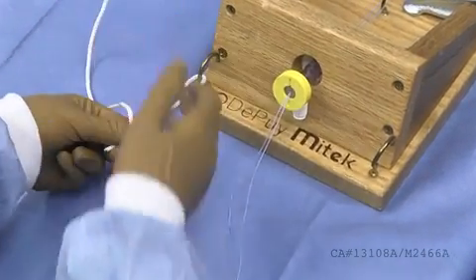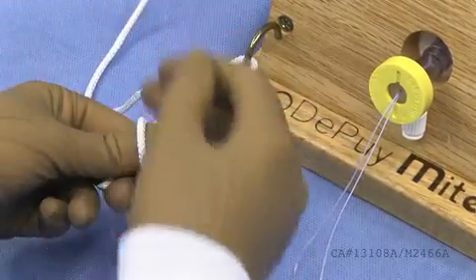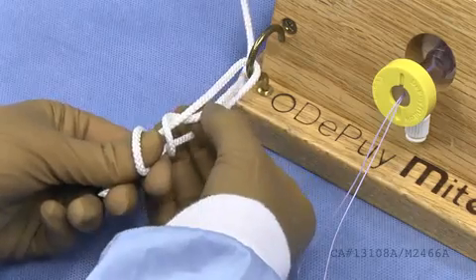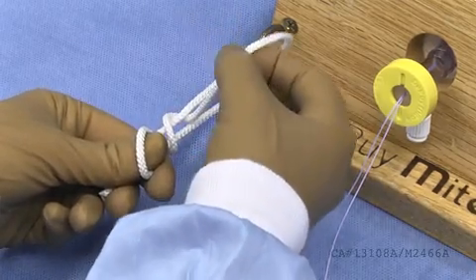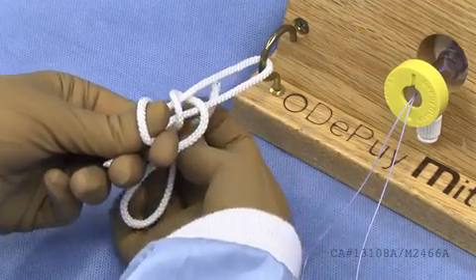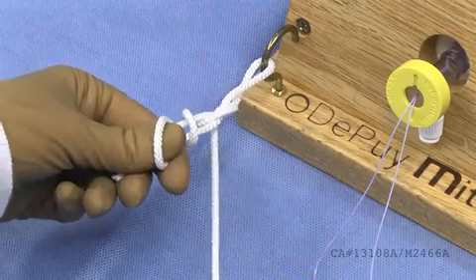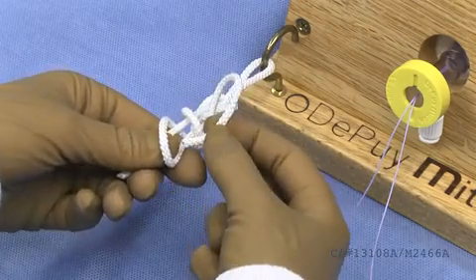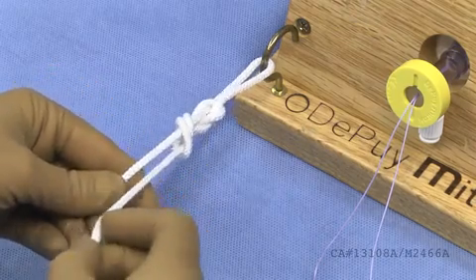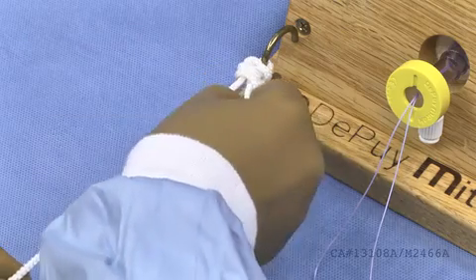After shortening your post strand, throw two overhand loops. Bring the suture up through the middle, distal to the second overhand loop. Bring the suture over the right strand, then again up through the middle distal to all the work you have done to this point. Bring the suture over the left strand, then bring the suture underneath both strands and dunk the suture through the thumb loop. Slowly dress the knot and pull on the post strand of the suture to slide the suture to the desired location.